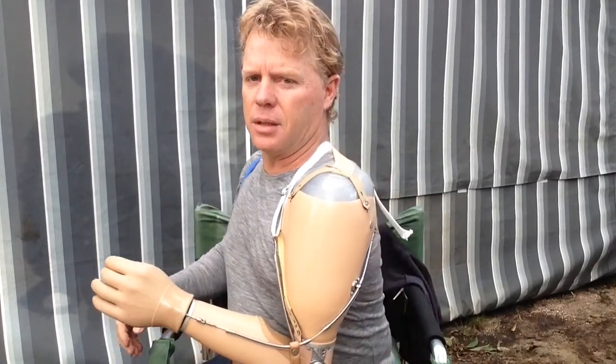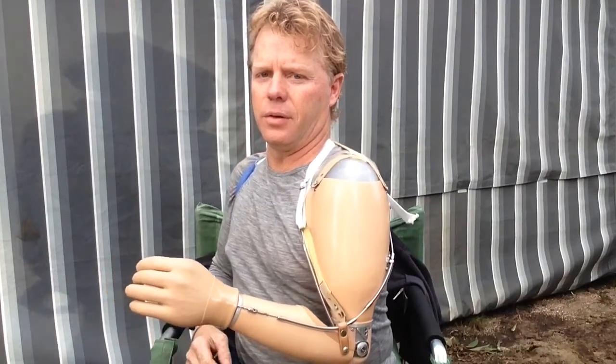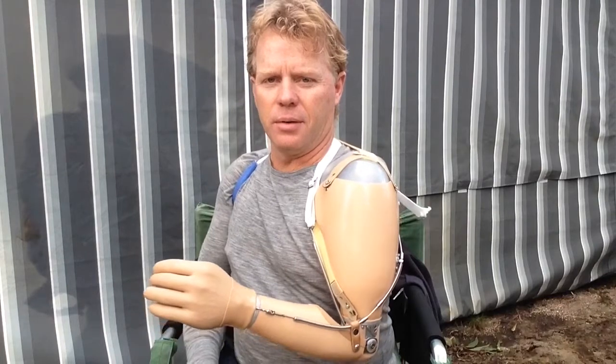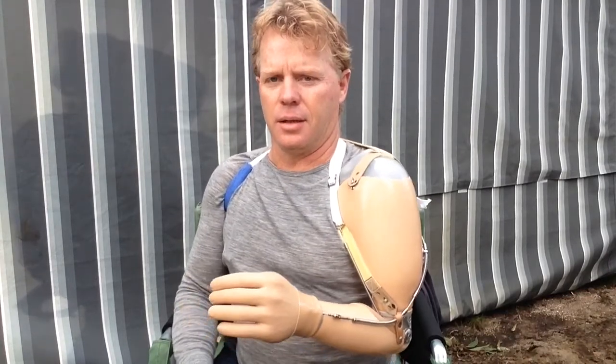But I've started. The technology is nearly 30 years old with very little improvements — that's where my disappointment was. However, this is only the beginning and this is the stepping stone to my electrics. Somewhere down the track I have an electric hand that I can use just by thinking about it. I'm really looking forward to that, but that's going to be a while. Anyway, I think that's enough to get you an idea of what this clunky bit of machinery does. It's called my arm.